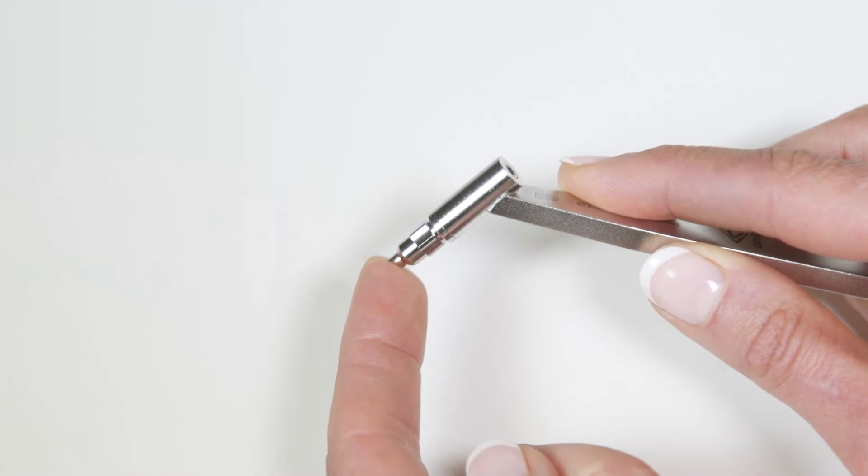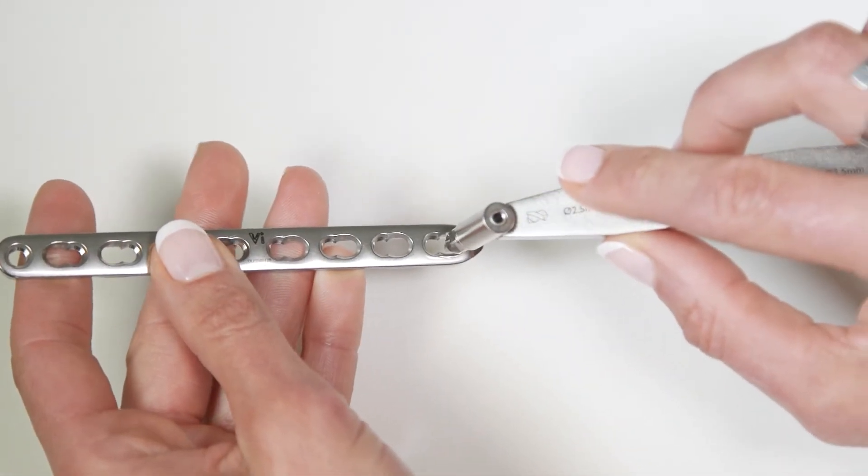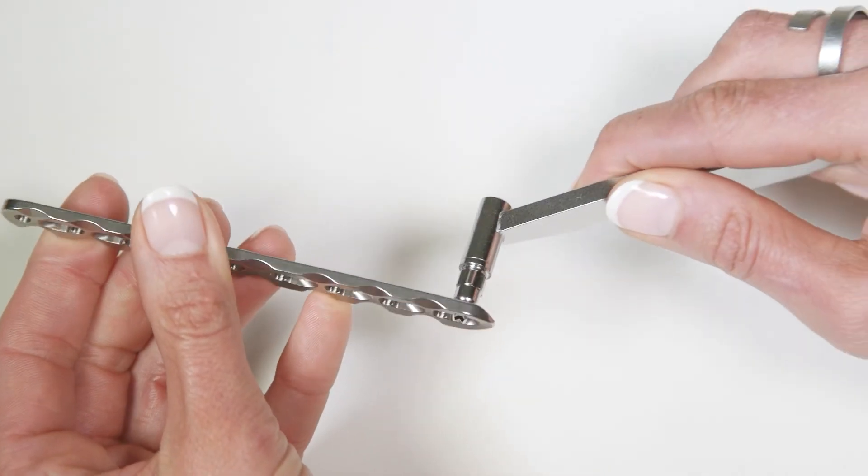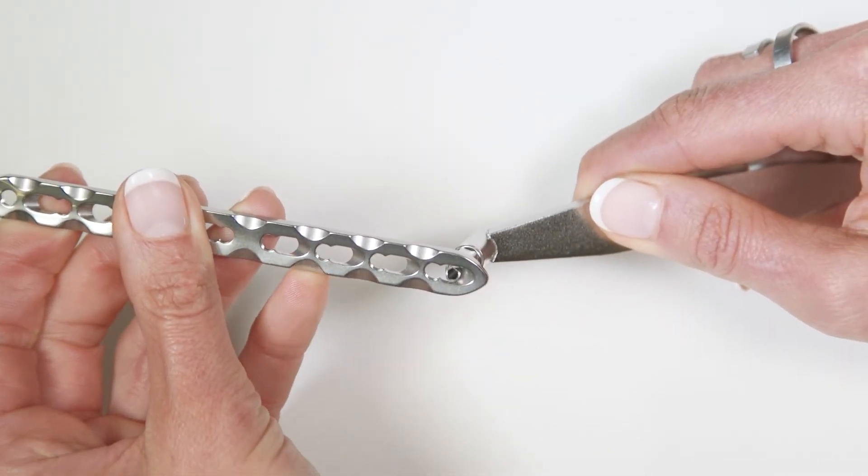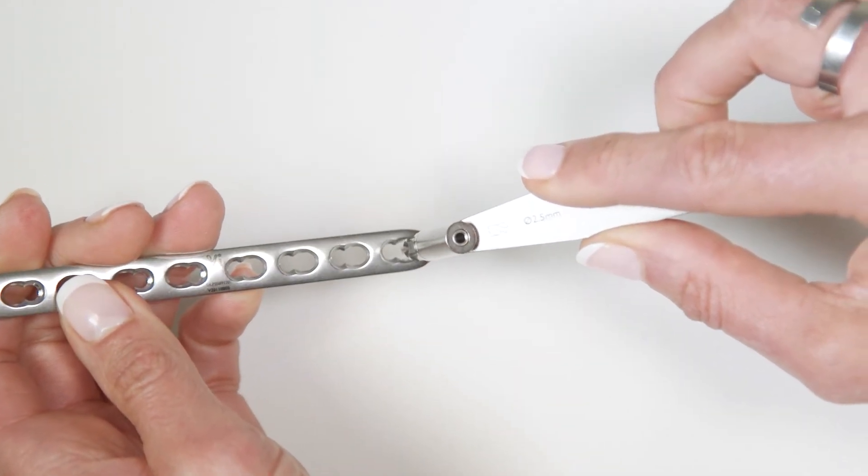To achieve positioning of the pilot hole in the loaded position, the spring-loaded tip is simply placed into the end of the plate hole. No pressure is applied to the sprung tip. This will position the pilot hole correctly for a loaded screw.